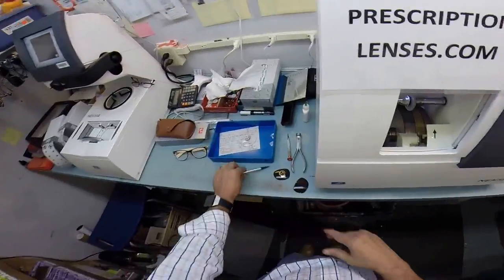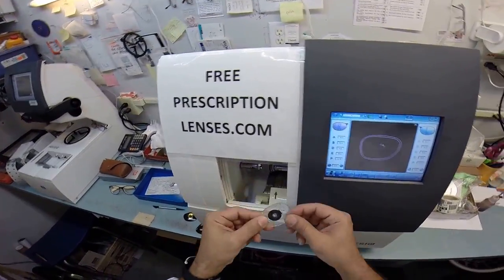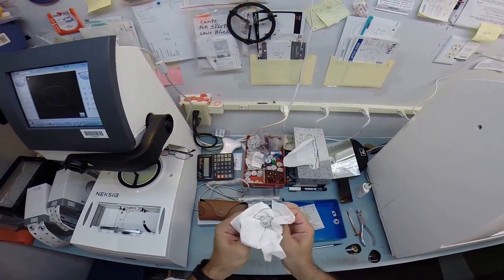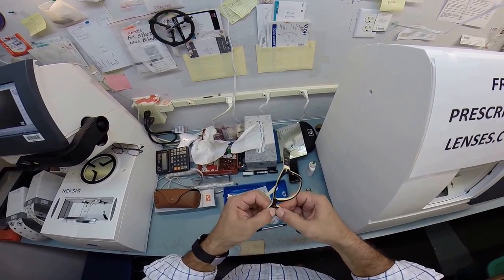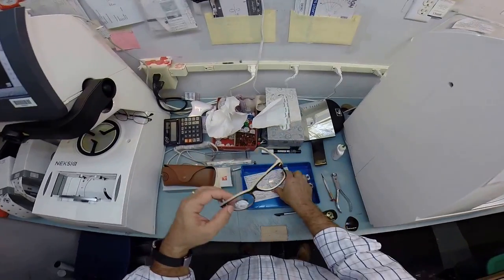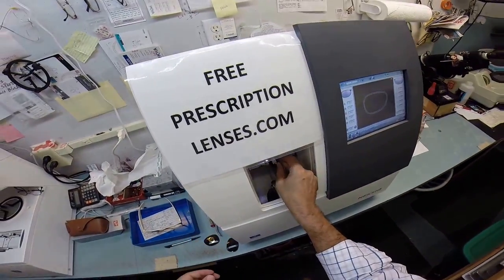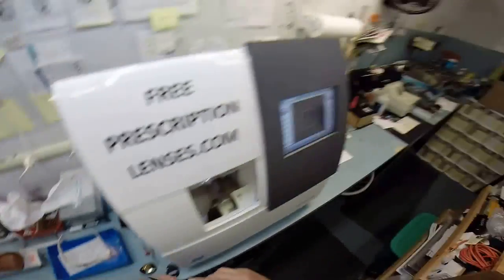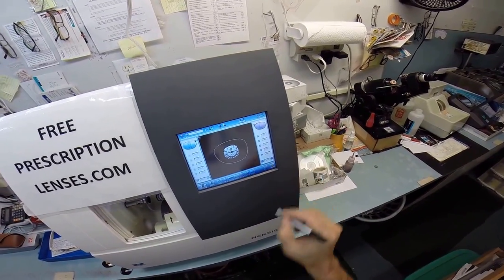So it's actually done now. Let me put the pen down. Open the chuck up. Let me take your right lens out. Let me dry it off so it's not slippery. And I'm going to go ahead and get it mounted into the frame. I'm going to tuck it in at the outside corner first and then push down with my thumbs and it snaps in perfectly, which on my old machine never happened on the 55 eye size. So let me put this in. The 52 that I wear cuts perfectly. Flip this over to left and let's go ahead and start.